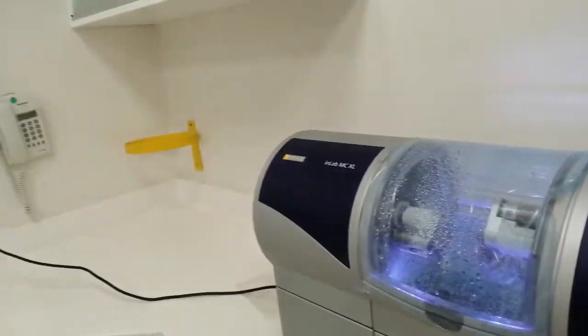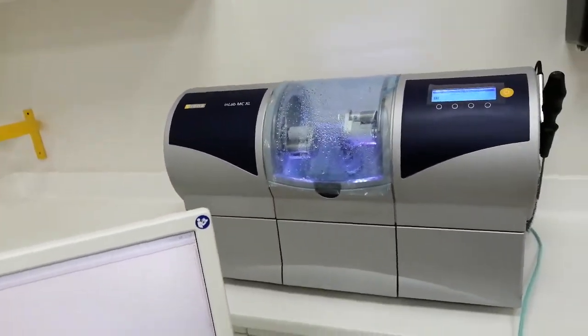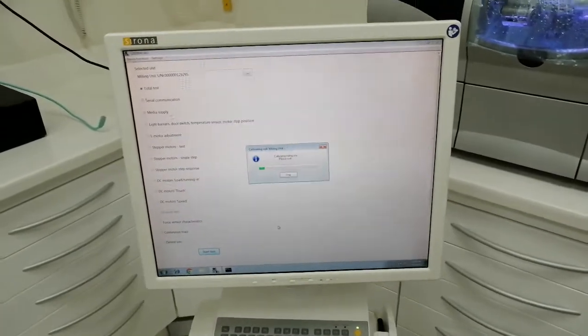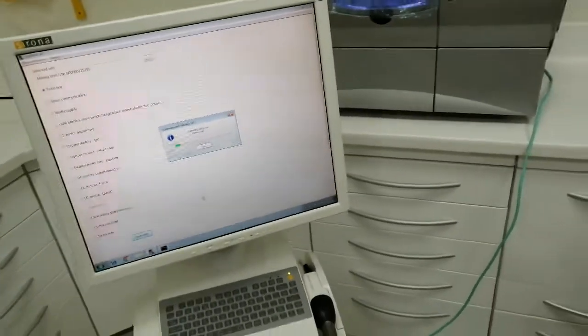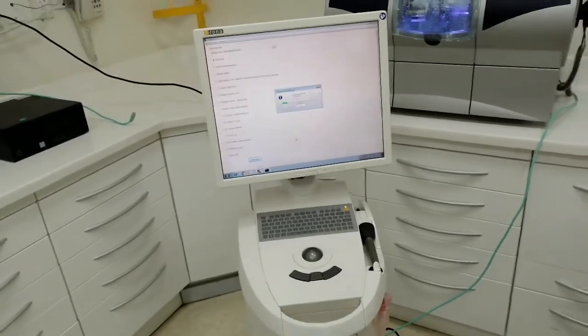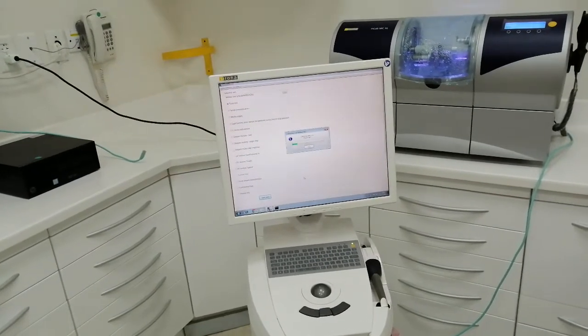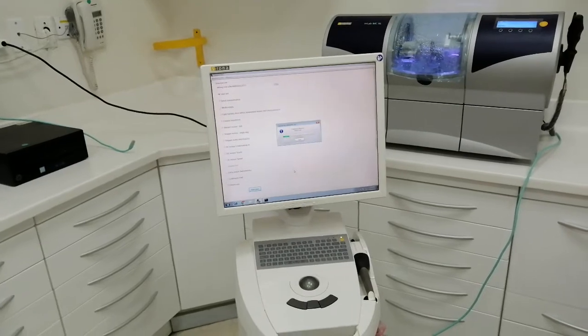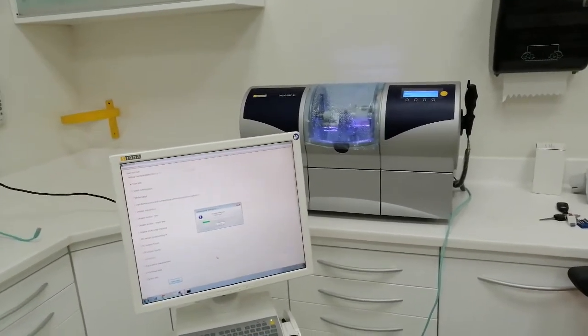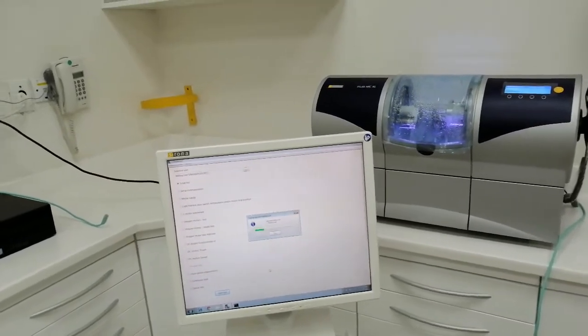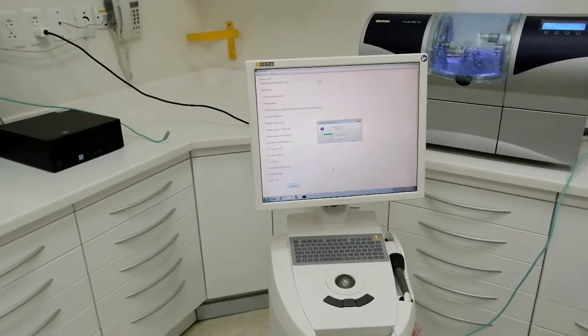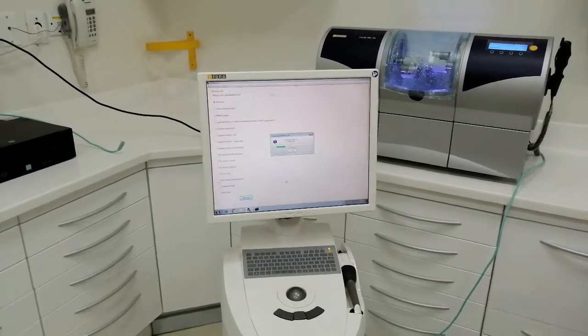I did the software update on my laptop because the internet in my office is very fast, then I will install it here. If I wait to install from here, it will take more time. This is to update the CEREC software. The second update I already requested from Germany is a new computer with Windows 10. The old one has Windows 7.